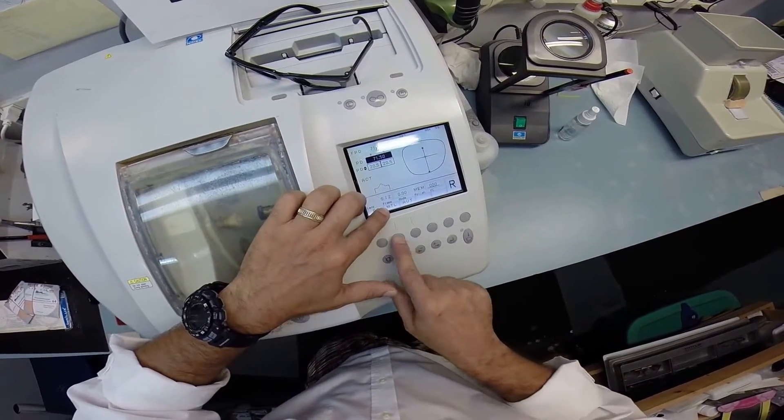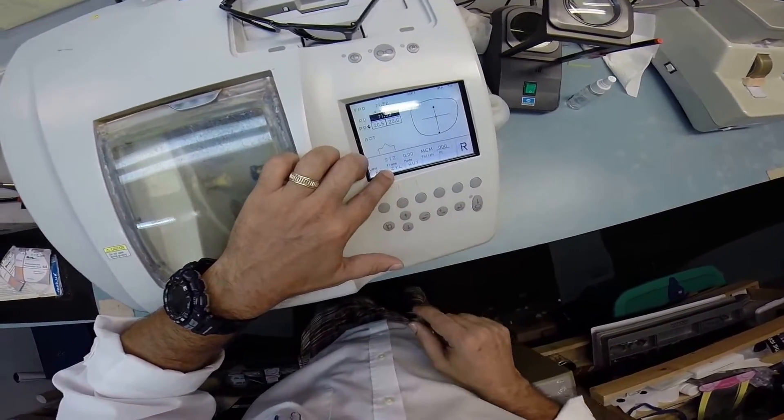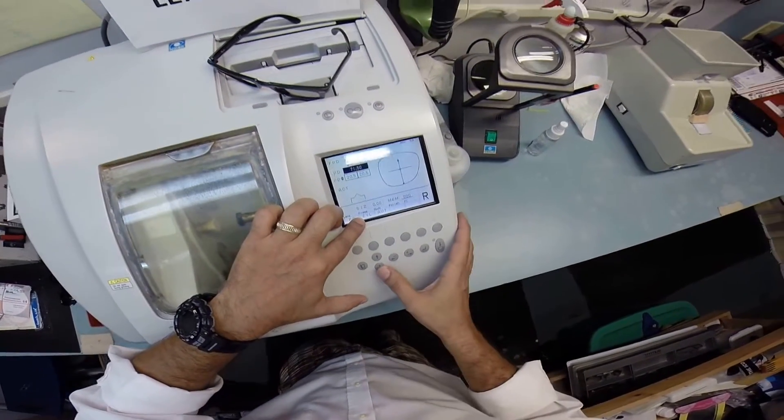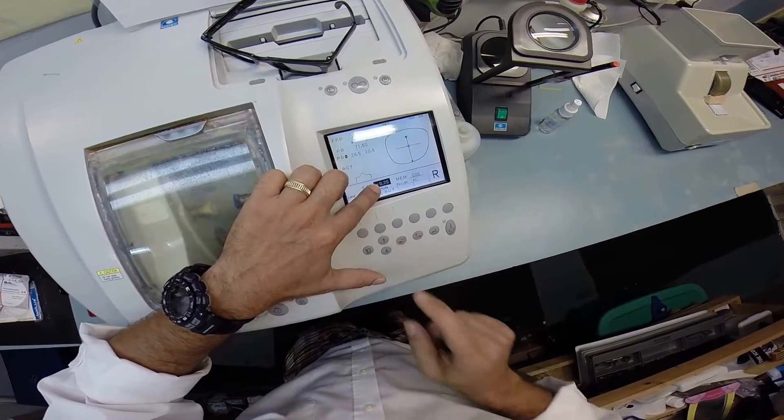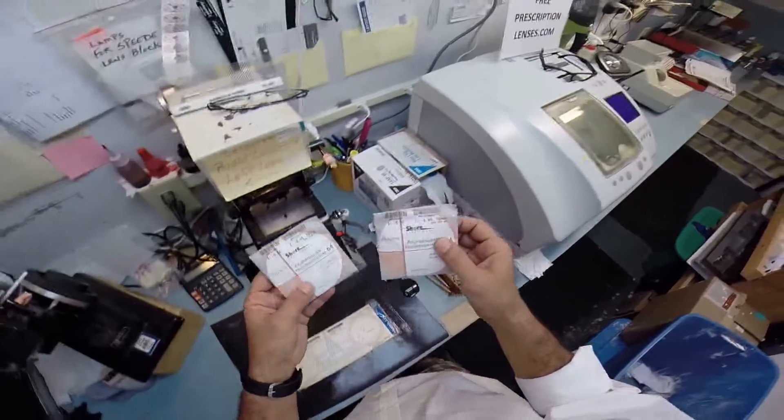This is going into a zyl frame, which is just an old-school name for plastic. I know in advance that this frame cuts a little large, so I'm gonna take it down in size. I may have to cut the lens down even more, but I'm just gonna get it close to its final size.